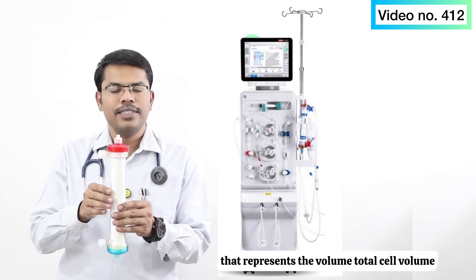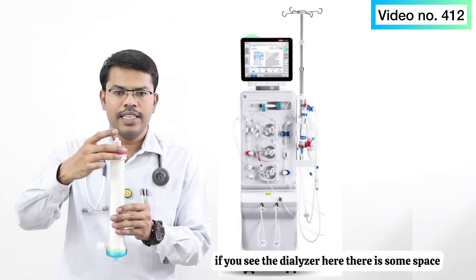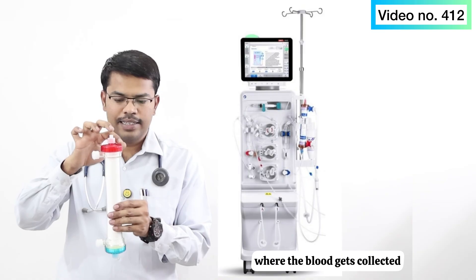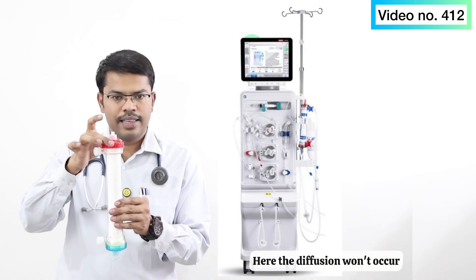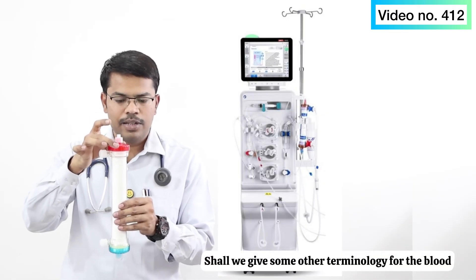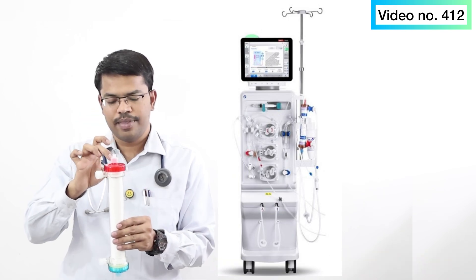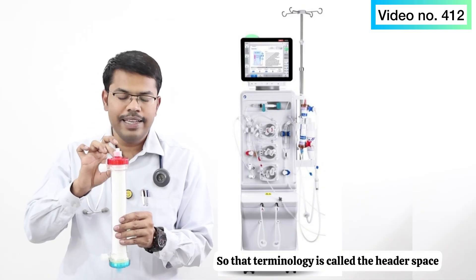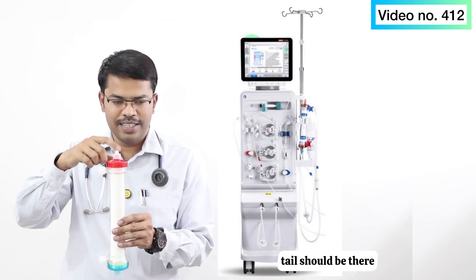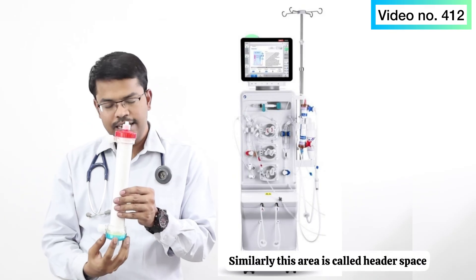Total cell volume covers the entire blood compartment. Inside the dialyzer, there is some space where blood collects before entering the micro capillaries — diffusion does not occur there. That space is given a specific terminology: header space. Just as there is a head, there is also a tail, but in the dialyzer there is no tail — only header space.